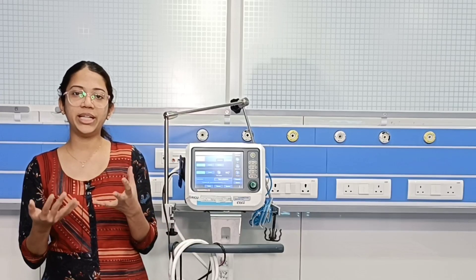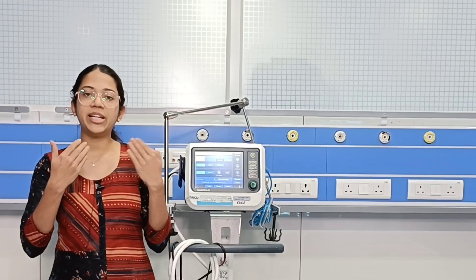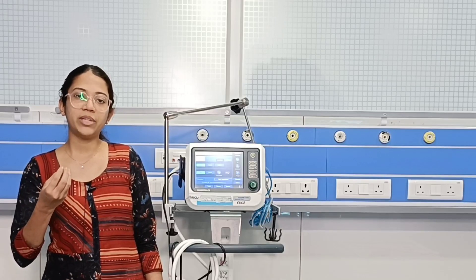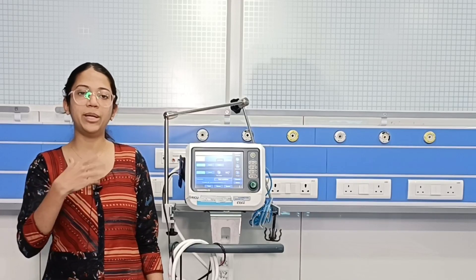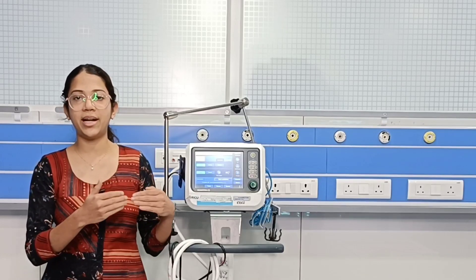In this mode we will be able to set a targeted tidal volume and a respiratory rate. Along with that, the ventilator will be sensing for the patient's breath, and if the patient is triggering a breath, the ventilator will support that so the patient can reach the targeted tidal volume.